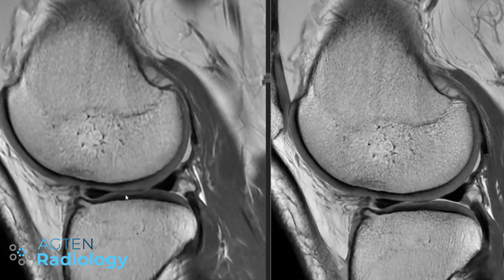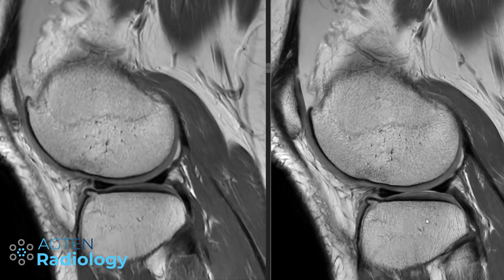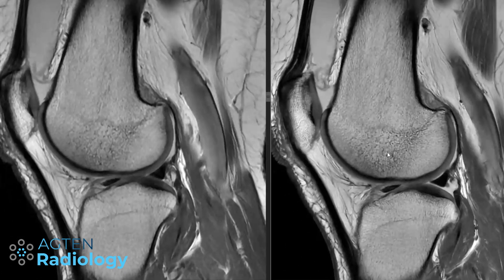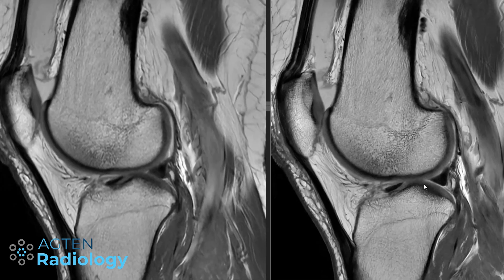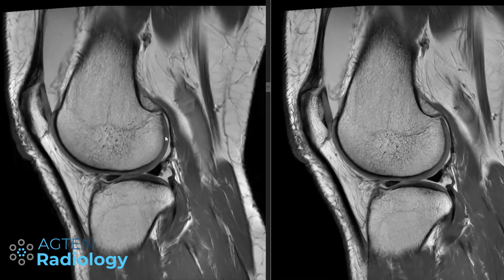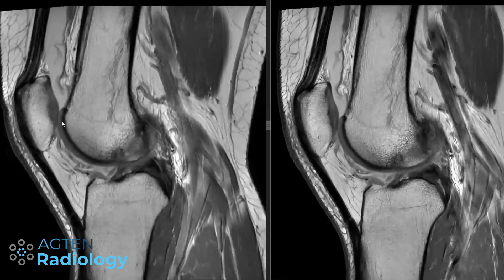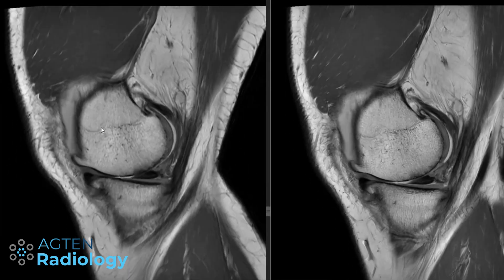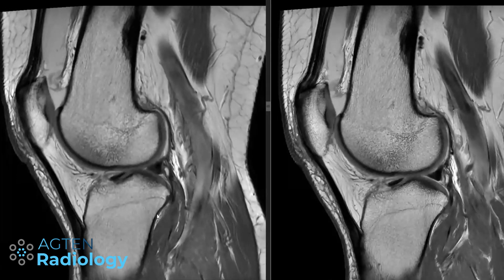This then brings the question — why should we even use the standard protocol? I think it's just nicer to look at — it's sharper. But I still like the fast sequence quite a bit, and it's still better than most of what we get at other locations. So I'm very happy with this.